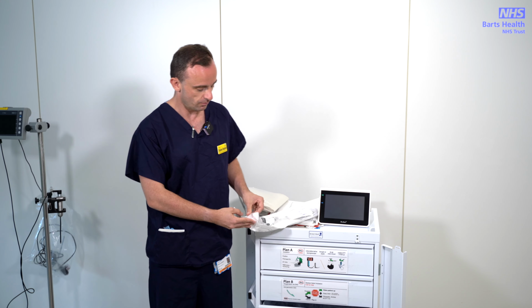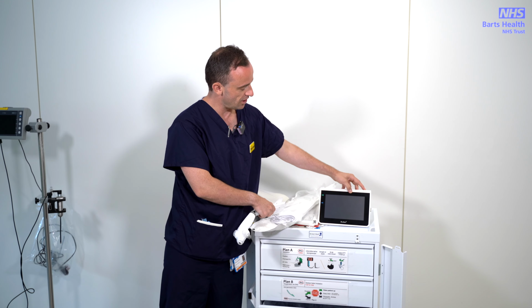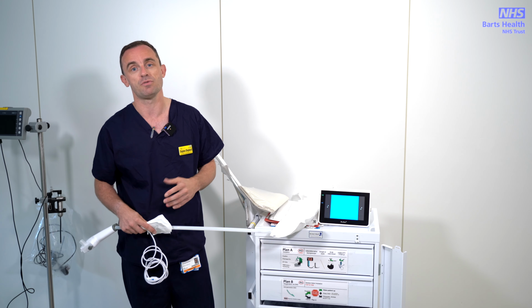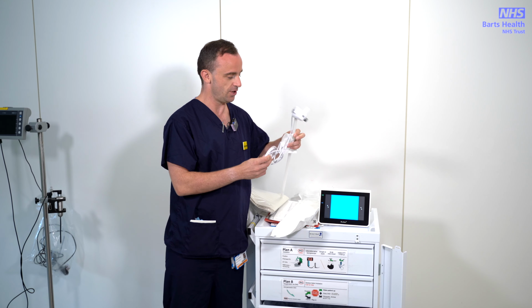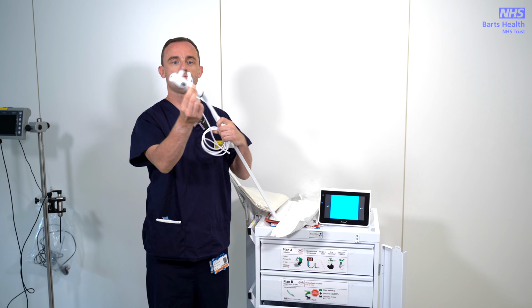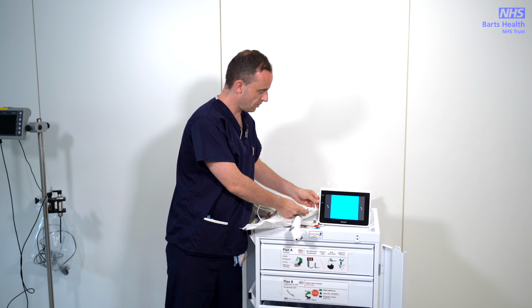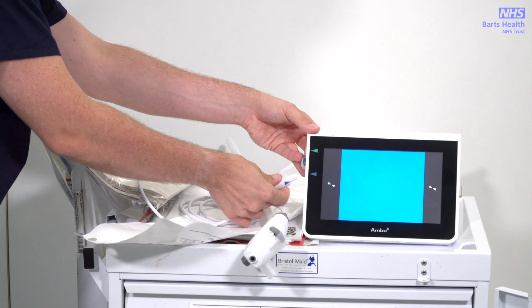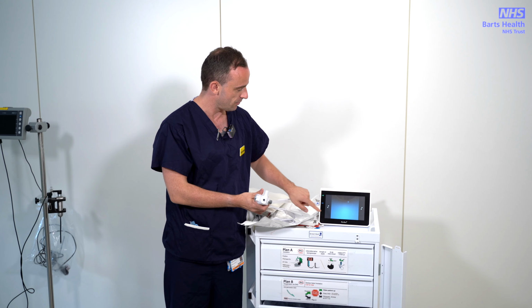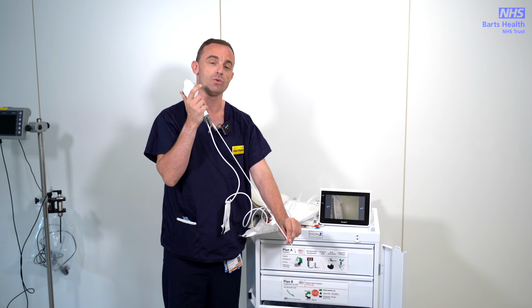They're pretty easy to use. You'll find aScope screens on every one of the difficult airway trolleys. You turn the machine on at the top left. It doesn't require to be plugged in. It has a battery which lasts around 30 minutes, so it will work without. You'll see that you have a disposable cable, and this goes into the side. If you look at the top, you'll see that it's blue, and that tells you which port you need to put it in. You can see you've got green and we have blue, and it will only go in one way. When you do that, you'll get a screen picture, and when you tap, you can adjust that pretty easily. And it's steered from the top. But again, we'll show you how to do that.